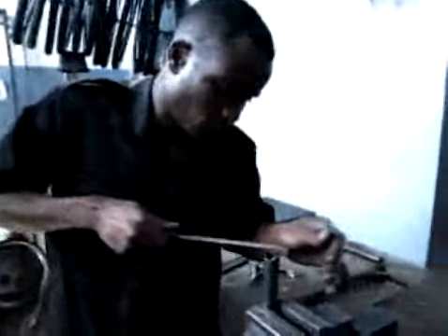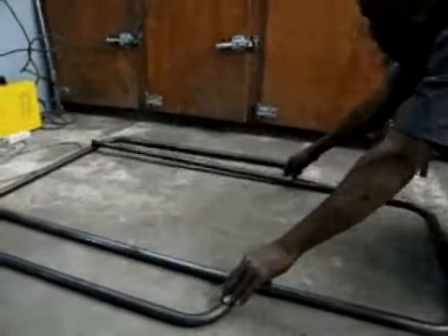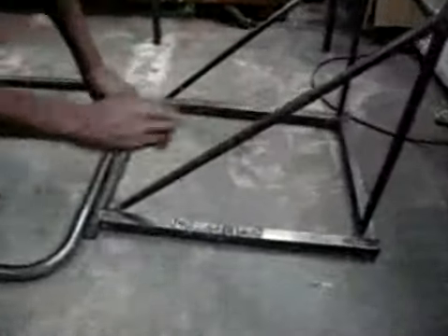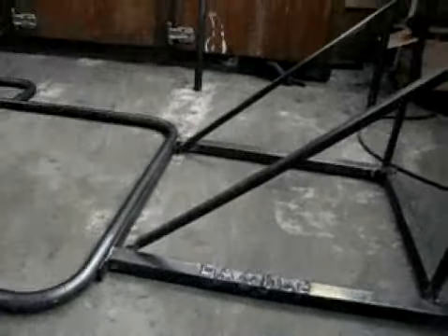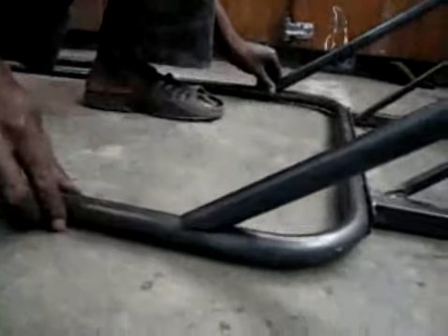The trailer frame consists of the outside frame, the inside frame, and the handle. There is also a pulling tube, dropouts, and fenders, which we will fabricate later. Miter the ends of the inside frame and outside frames to fit. Weld the handle to the ambulance frame so that when there are 26 inch wheels on the ambulance, the handle will be located at 840mm above the level of the ground.